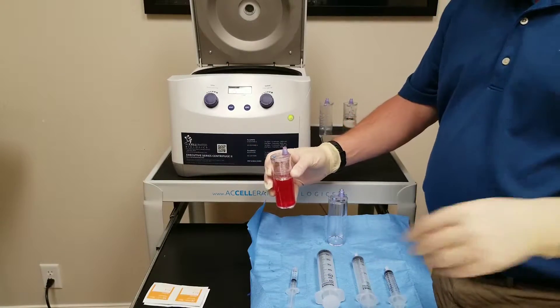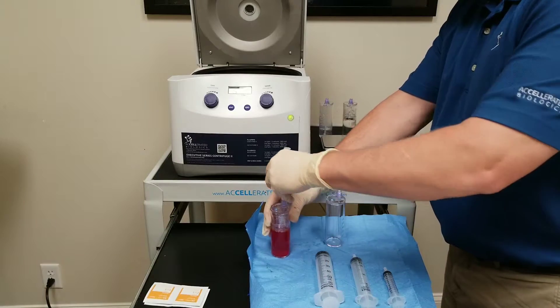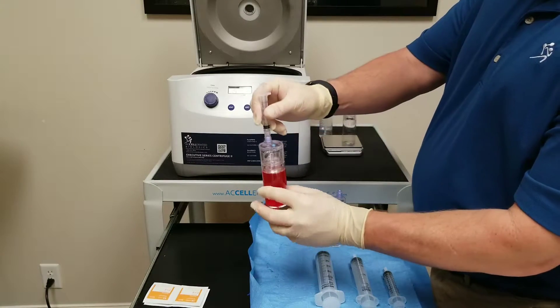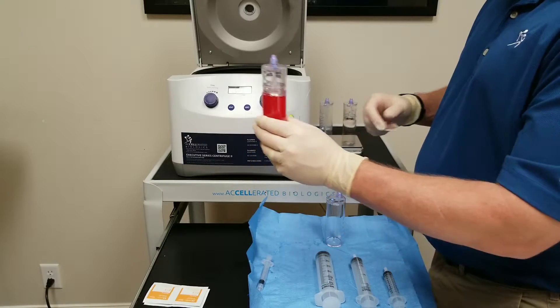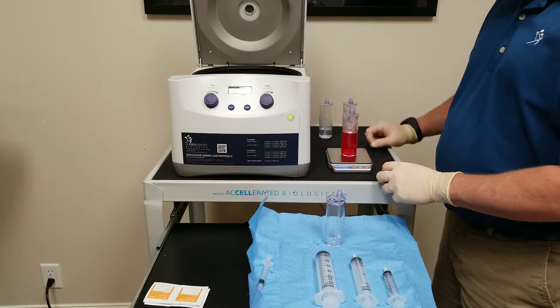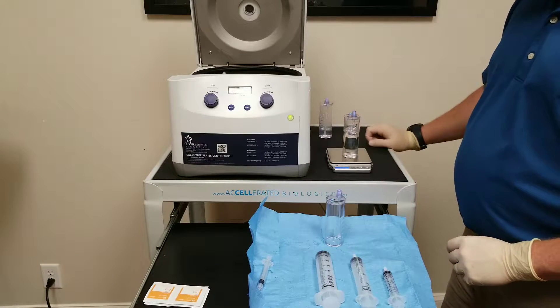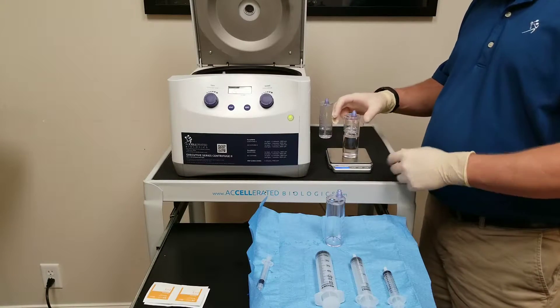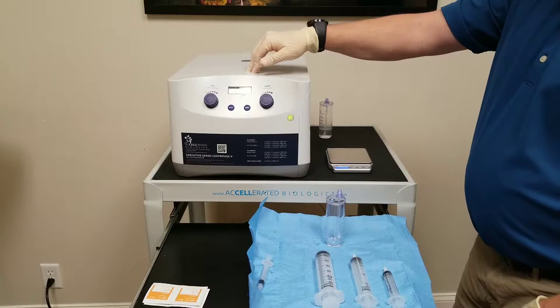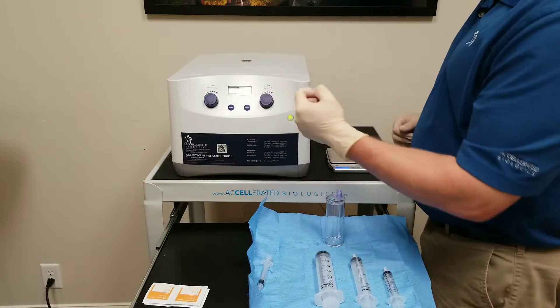First range is done. Before our processing, I'm going to just clear the tube so all of our blood is in the concentrating device and none is left in the tube inside of the device — just a quick one or two mLs. Now we're ready to process. First spin is one and a half minutes at 3800 RPM. We'll counterbalance our blood sample with an equal part canister of just regular tap water. As long as you're plus or minus five grams, we are good for a spin.